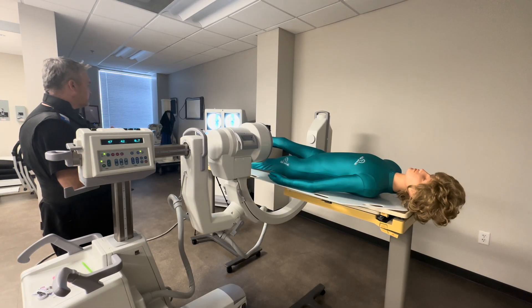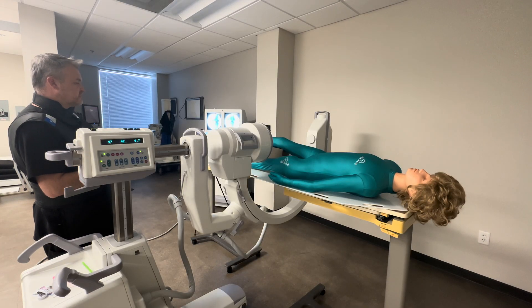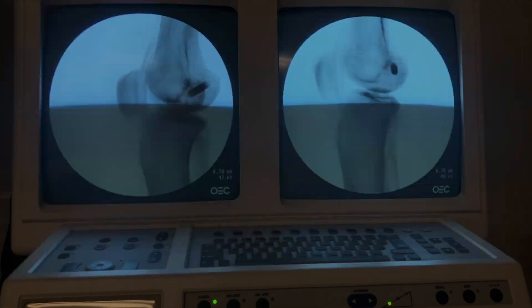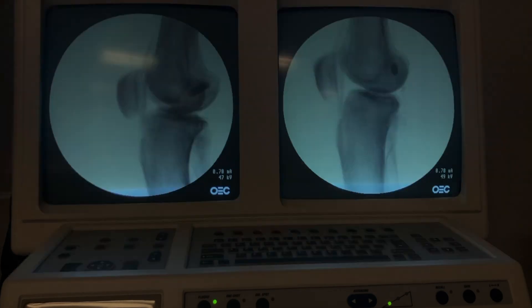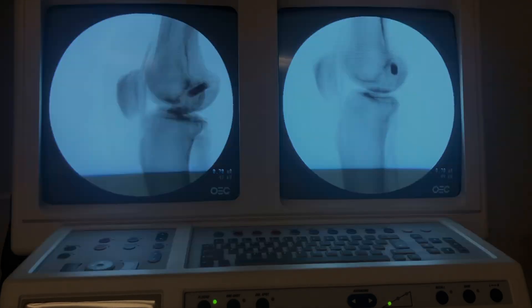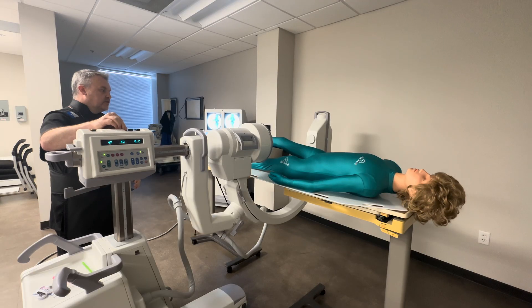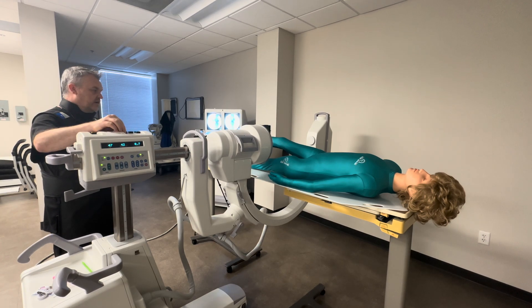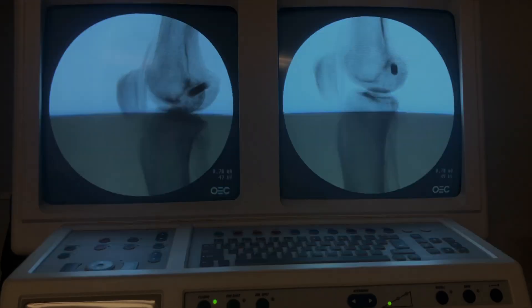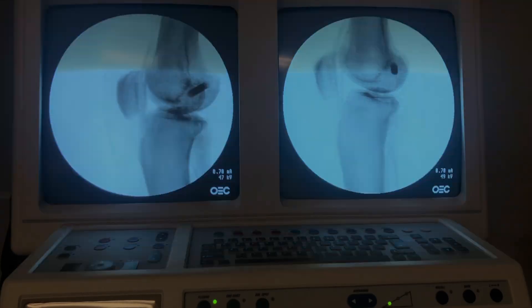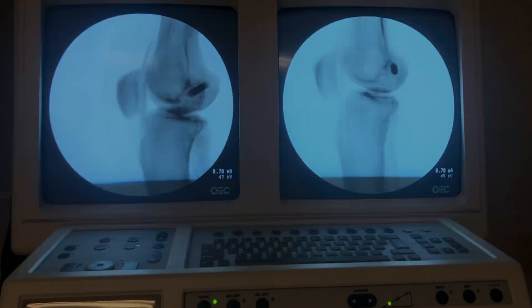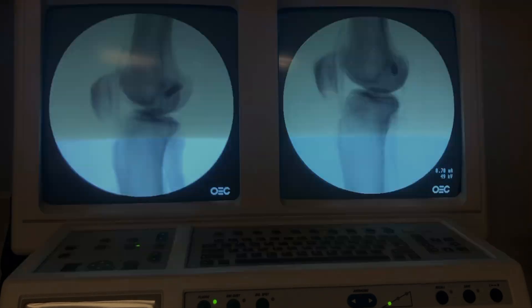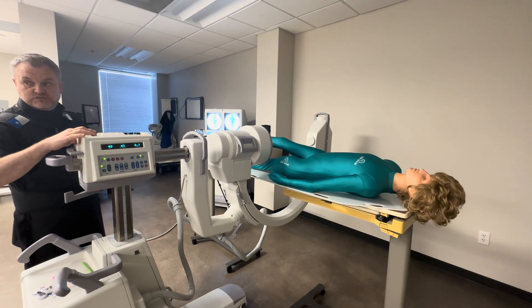If we look at this image, the central ray is currently anterior to where I want. So my correction for that would be to drop my C-arm height. So now I at least want the anatomy running more in the midline of the image. That's one start.